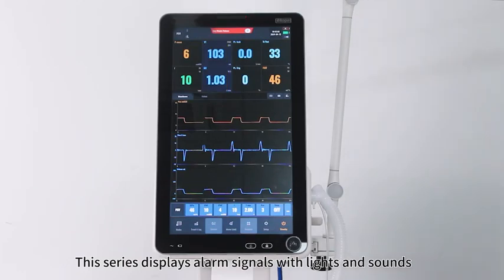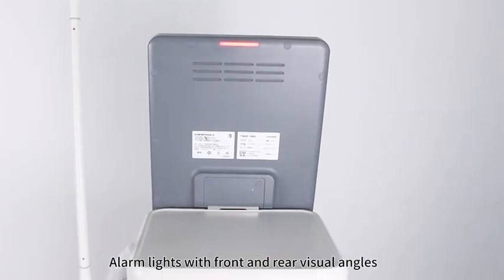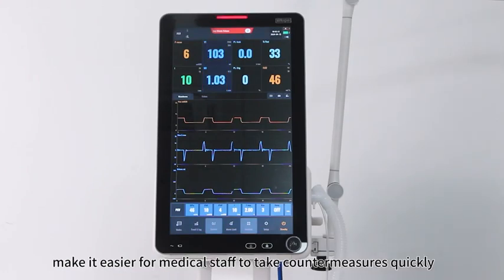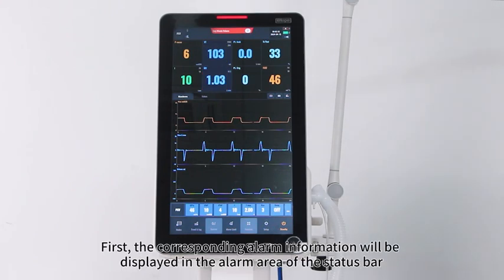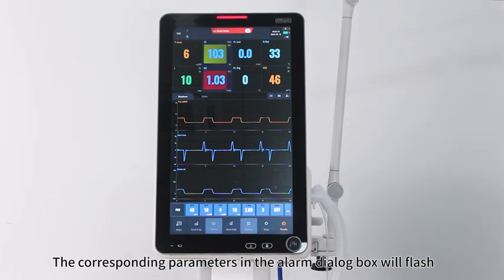Alarm. This series displays alarm signals with lights and sounds. Alarm lights with front and rear visual angles make it easier for medical staff to take countermeasures quickly. First, the corresponding alarm information will be displayed in the alarm area of the status bar. The ventilation parameters that trigger the alarm will flash. The corresponding parameters in the alarm dialog box will flash.